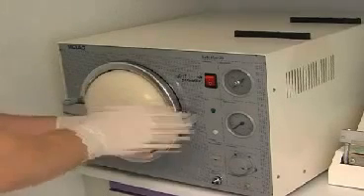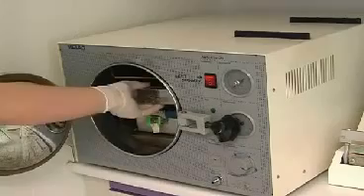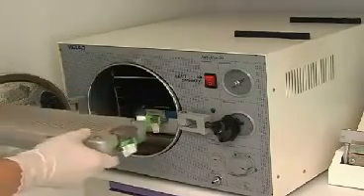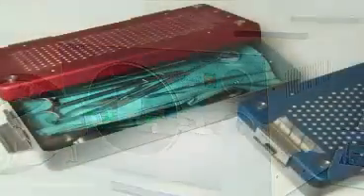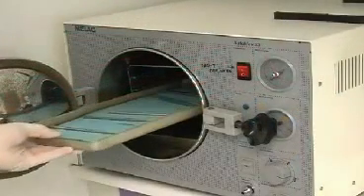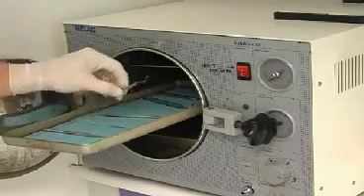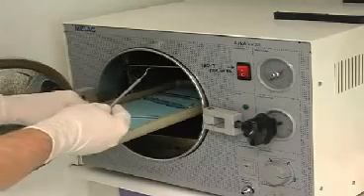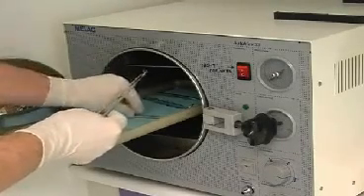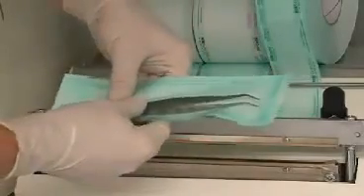After sterilization, the containers are removed from the autoclave, and the surgical instruments are prepared for upcoming patient treatment. In the picture, you see a surgery container in which the instruments are neatly stored. Doctors' offices do not usually use surgery containers. This leads to an interruption in the sterility chain as soon as the instruments are removed from the autoclave and come in contact with hands and fingers.